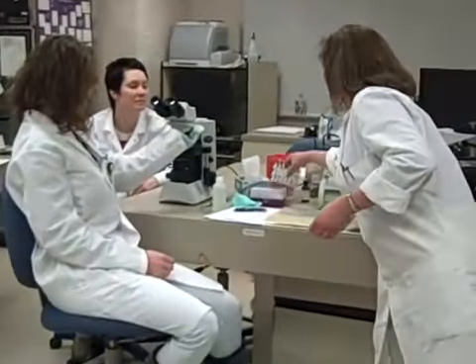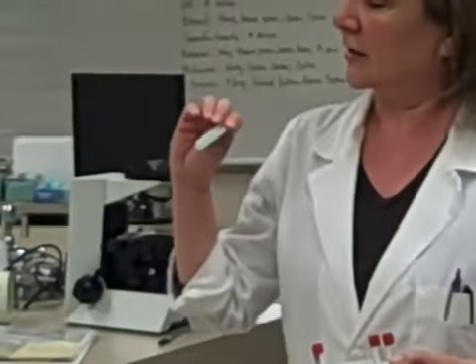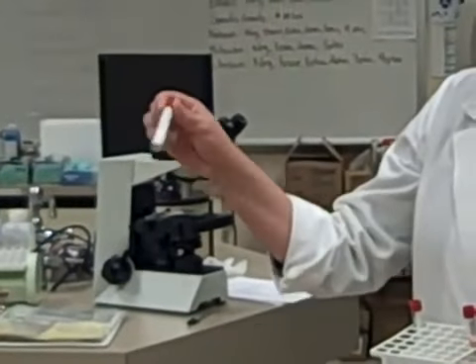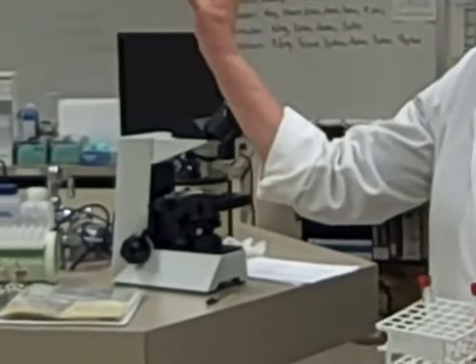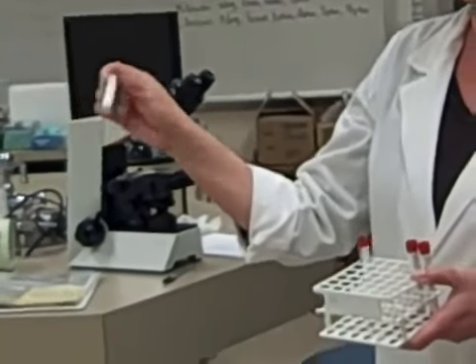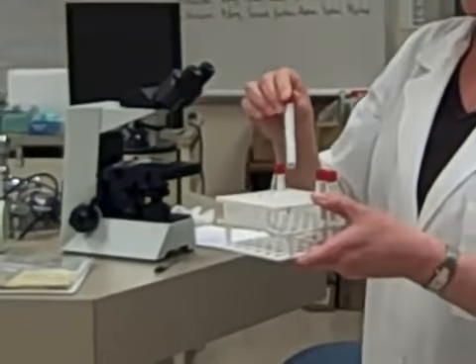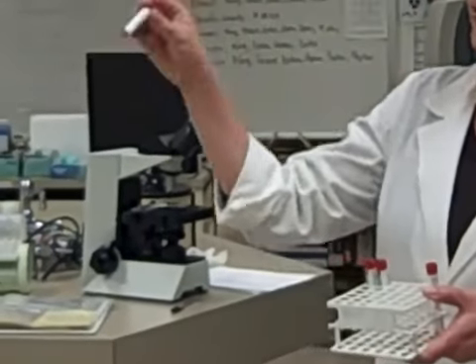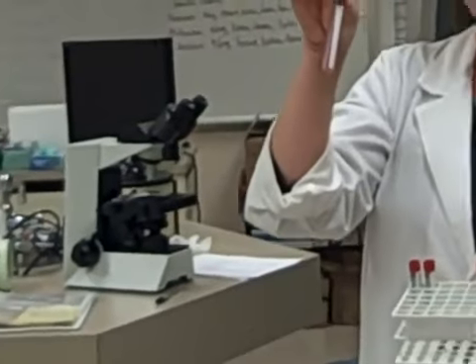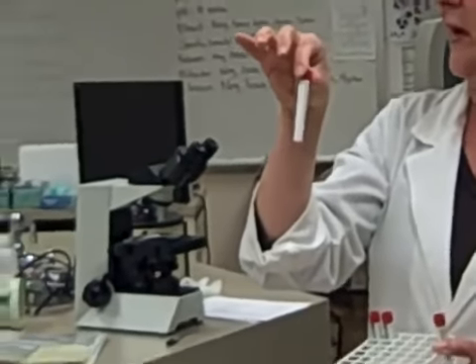We've got two specimens at your table. One is kind of colorless and clear — it's kind of hard to see through the plastic tubes, but down at the bottom you can see a cell button. The colorless and clear one is going to have probably a lot of white cells in it, very little red cells. The other one is kind of red and hazy, so this one's going to have red cells in it and maybe a few white cells.